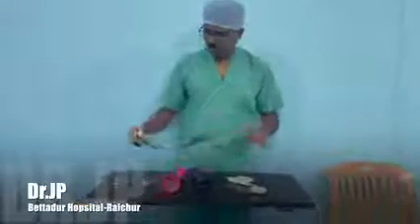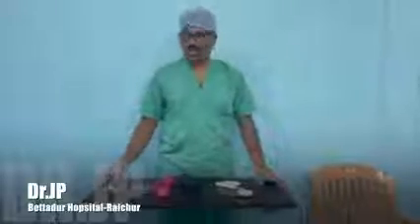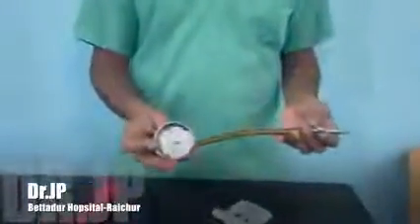Hello everyone, today we will discuss the types of vacuum cups. The first is the Malmstrom cup, which was originated in Sweden. As you can see, the cup is a metal one and it has a plate inside which is connected to a chain. It has an outlet where the vacuum is created and is connected by tubing.